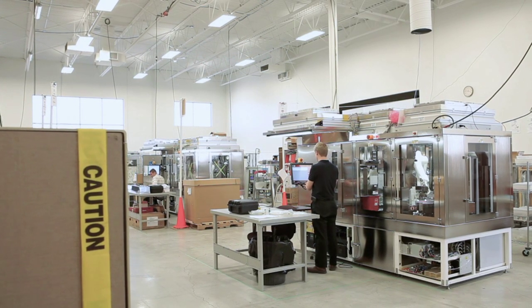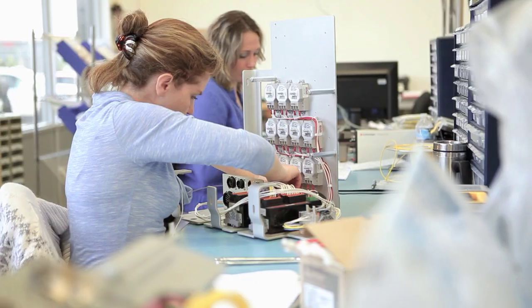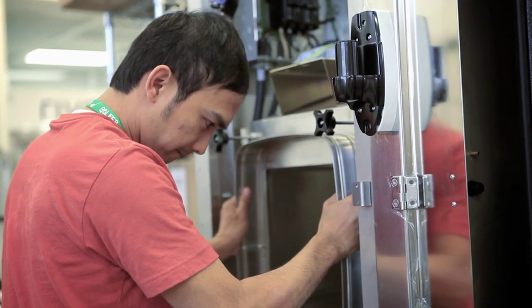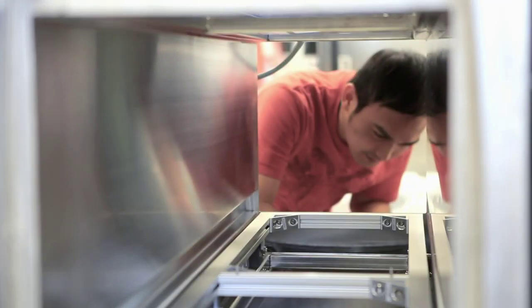And efficiency, well, it turns out that the cost of doing it manually is actually higher than the cost of doing it with automation. We want to be the front runner in helping create more efficient pharmacists as part of the hospital environment or the healthcare environment.